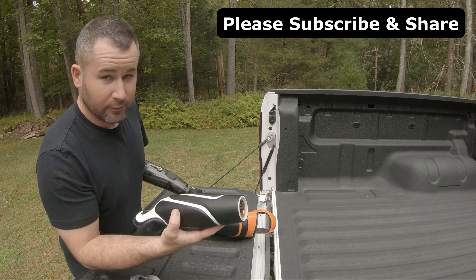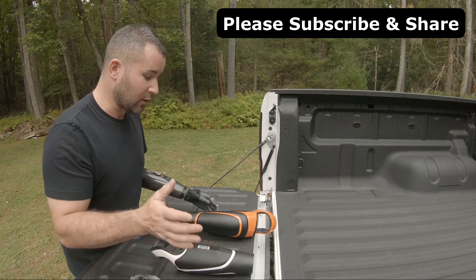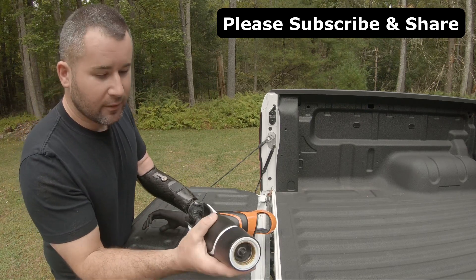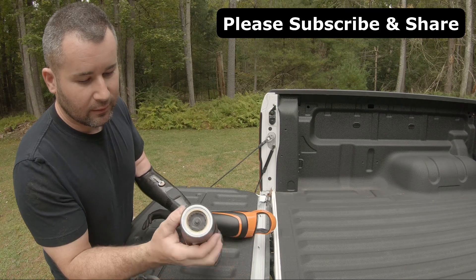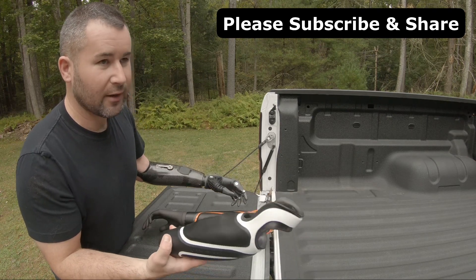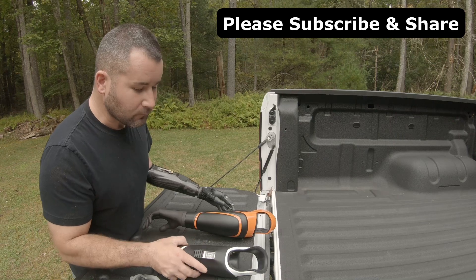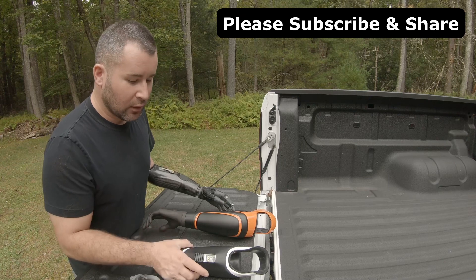It's a really good cost-effective way of getting an arm. It's very durable, it's light, the quality of the finish is very good. I wear this arm sometimes for work and it's got some chipping and scratches, but I'm very abusive on my devices. I don't work behind a desk — I work in construction basically, a lot of physical labor, hand tools, machines, et cetera.